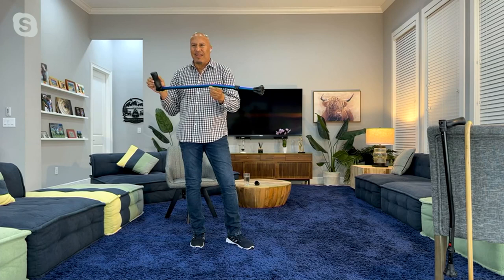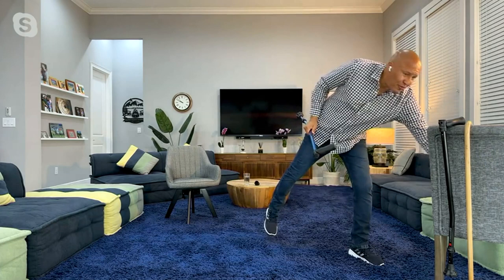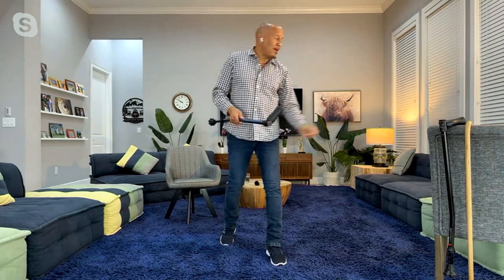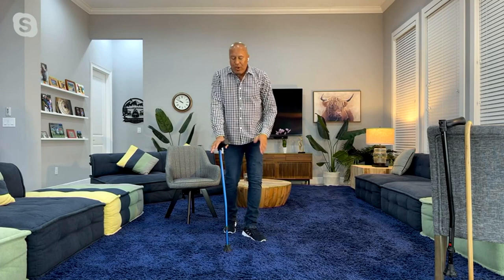Canes haven't changed in 2,000 years, and this is the most major advancement in canes in the world. It's available here at QVC. You can walk in rain, snow, mud — it doesn't really matter. And the grip, like I said, is wonderful and comfy, cozy. If you look here, it's easily squishable, very rubbery, very comfortable. For me, I have arthritis in my hands and I want to make sure that the grip feels good. When I slip sometimes and get out of balance with my old cane, I wasn't sure if I was going to fall or stay in balance.